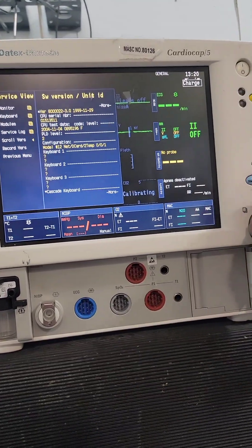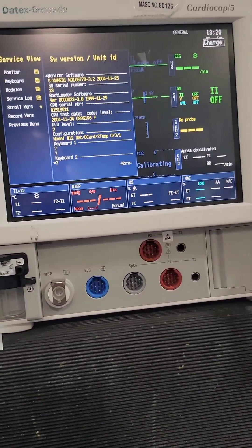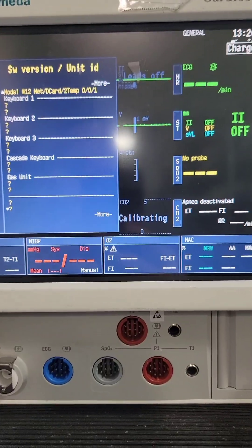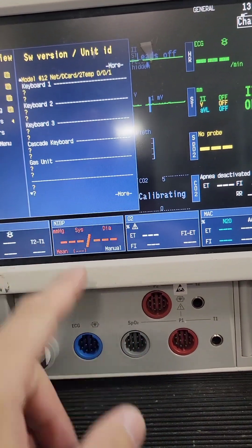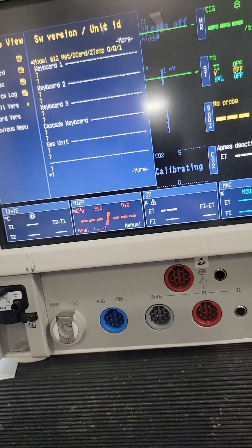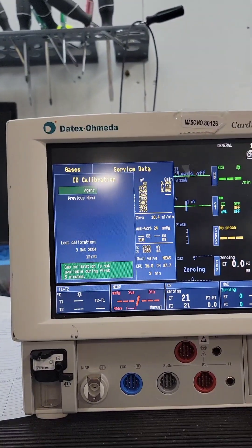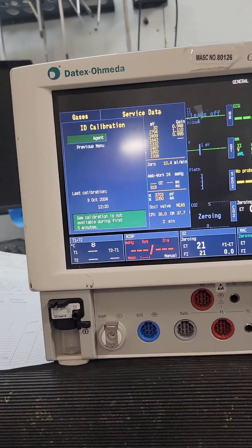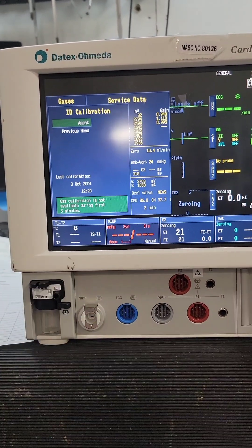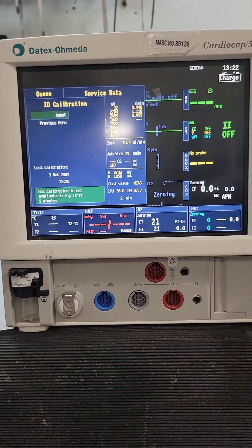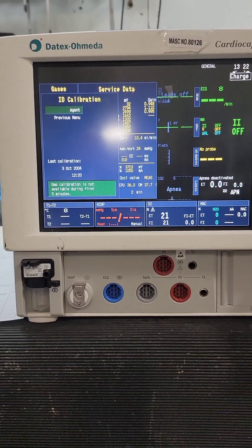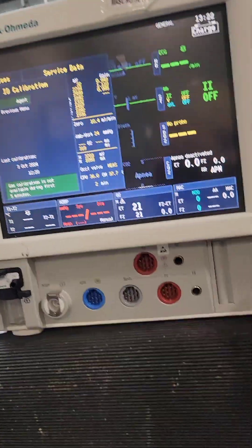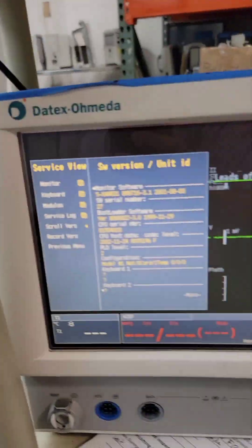Well, that's a problem. Wait — it's calibrating. That might all have to pop. So we're going to have to come back to this. I've got to wait at least five minutes before I can do anything. So let's go back to this one and I'll show you later.